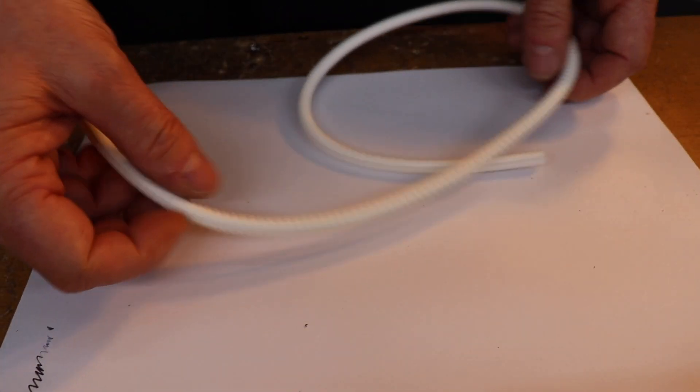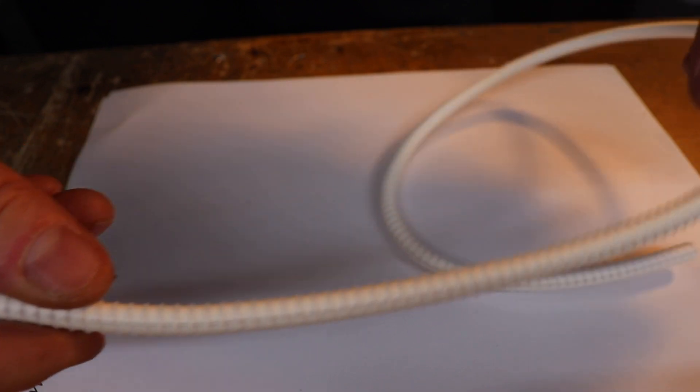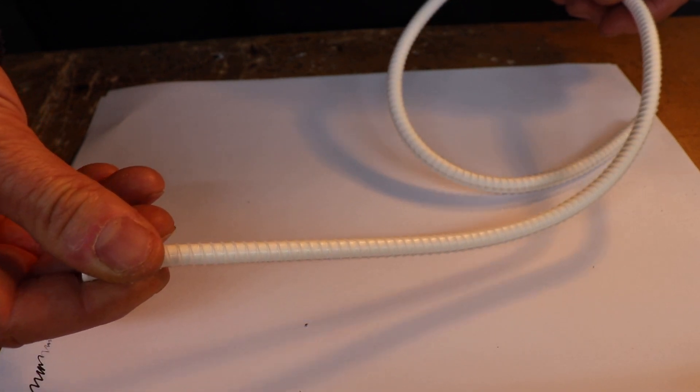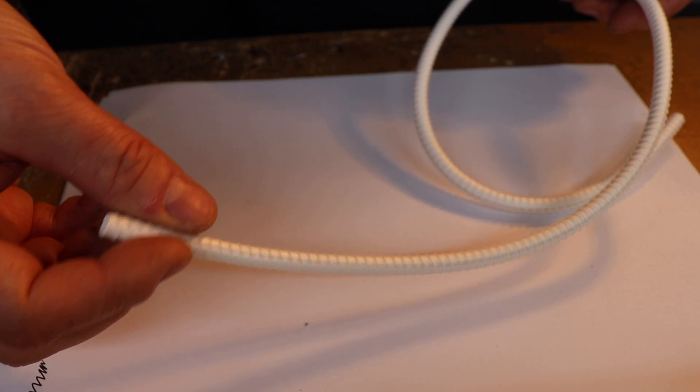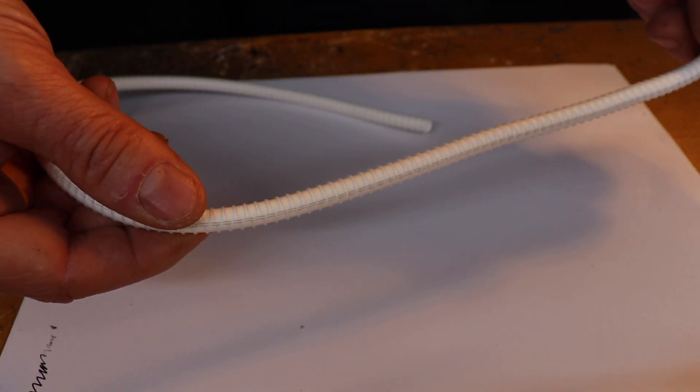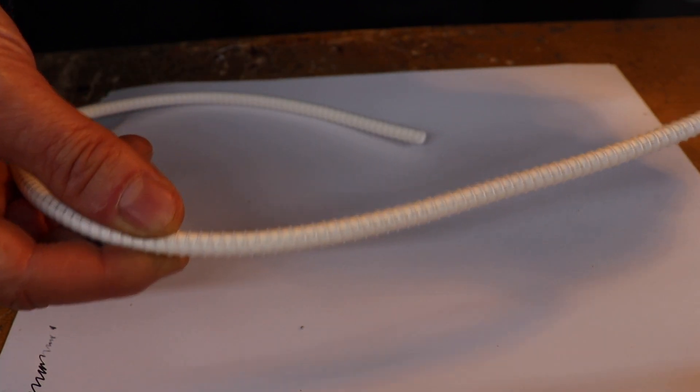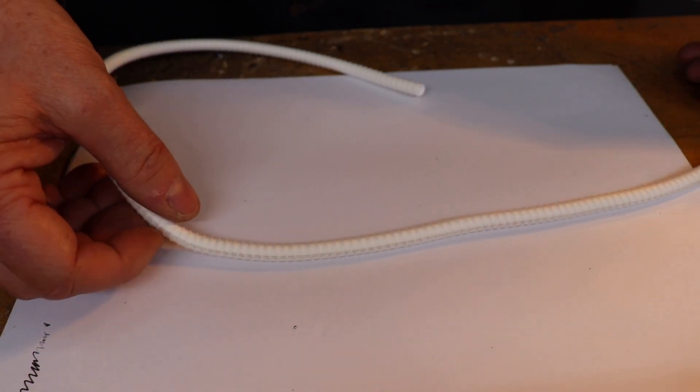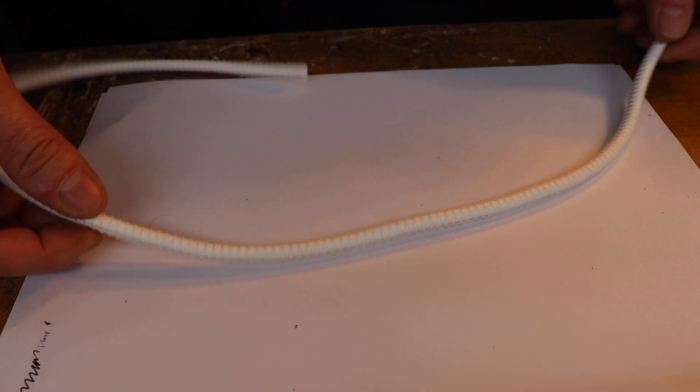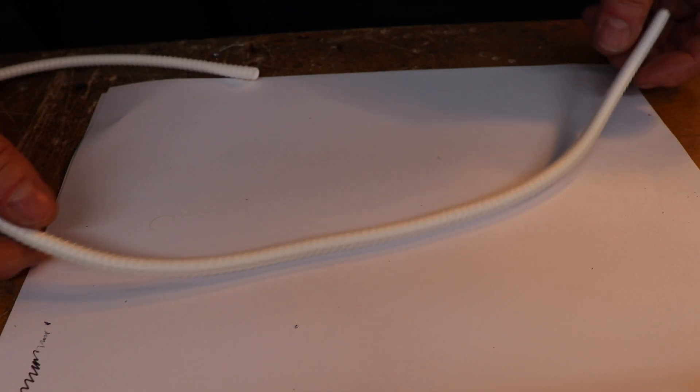Lastly, what we got here - just bring it a bit closer if it will focus - so this is a PTFE graft. This is about six millimeters in diameter. This type of bypass, you can see it's actually got rings on it. Again, let's see if you can get it to focus. This type of thing you would use predominantly in the lower limb, in the leg somewhere like that. If you were doing a bypass of the femoral artery down to another part of the femoral artery further down in the leg, then you would use something like this.